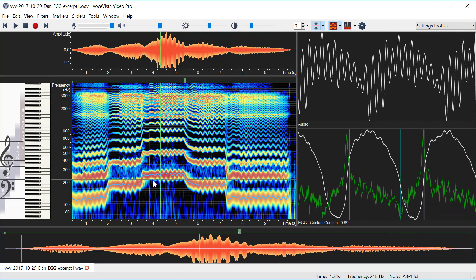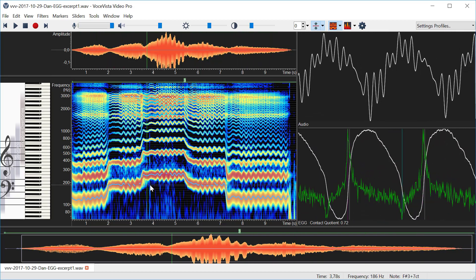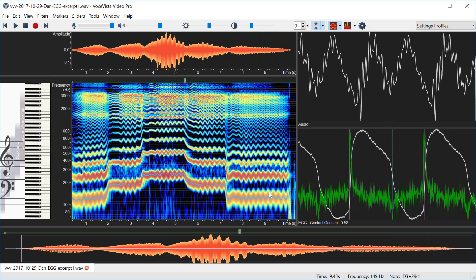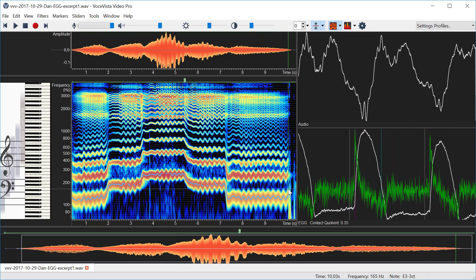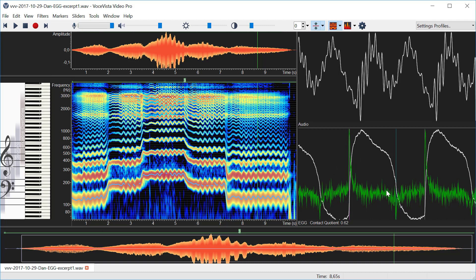So as you can see here in this file it doesn't change that much but you can see how it's calculated. So that's pretty much it what we have for now. Getting this to work is actually quite a lot of number crunching behind the scenes but it looks very simple, and this normalized EGG will later be used to display the wavegram which will be shown up here.